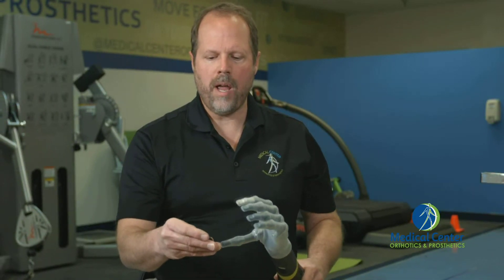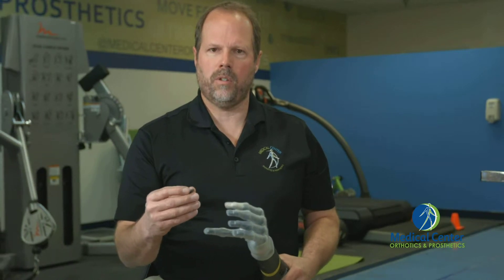When they wave over the grip chips, the hand will close or move into the position that they want it to in order to operate that device — a nice little feature.